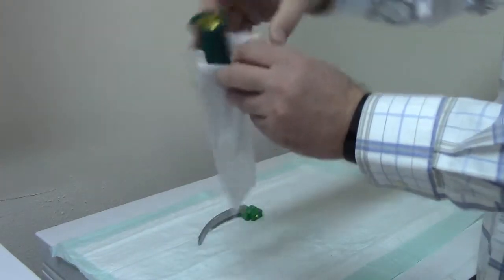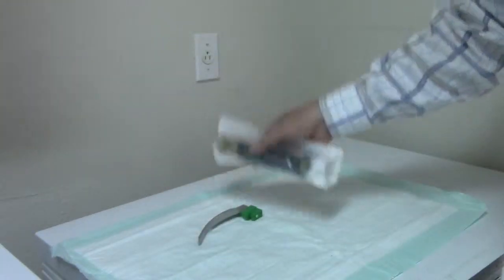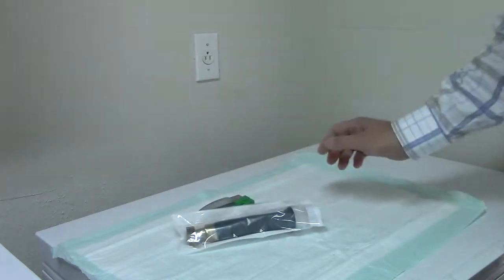The handle simply slides in through the white tabs and is protected in that position. If you want to leave it on the anesthesia cart or crash cart, it has a barrier to protect it from cross-contamination.